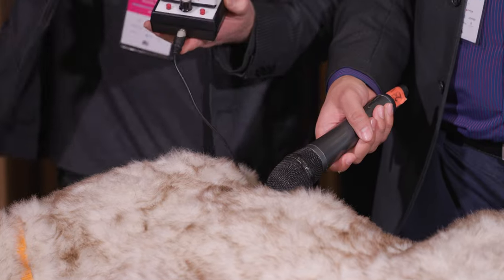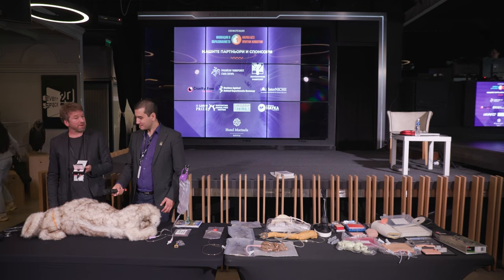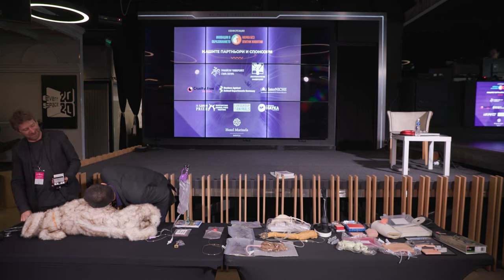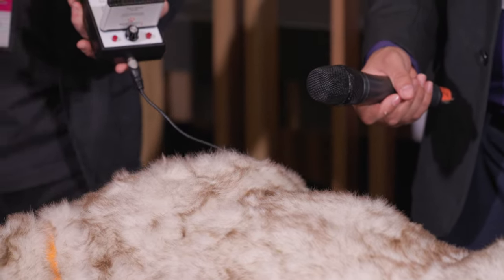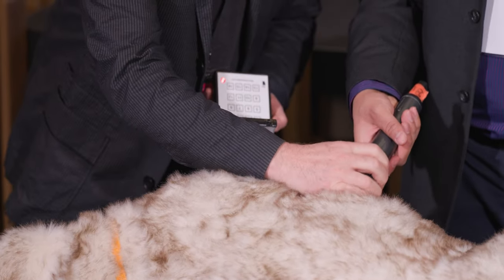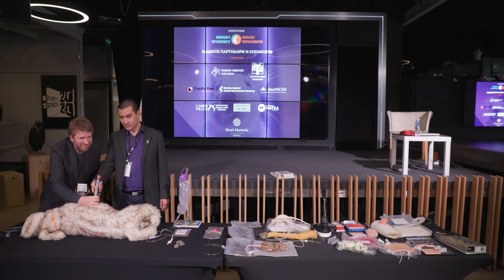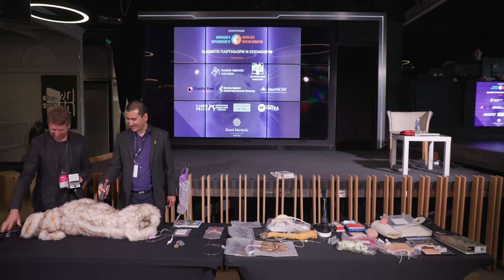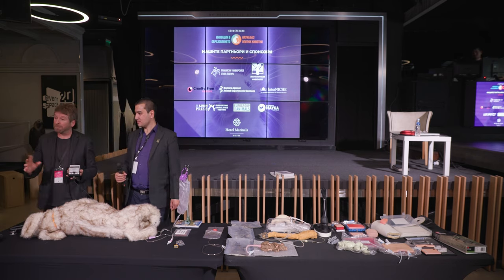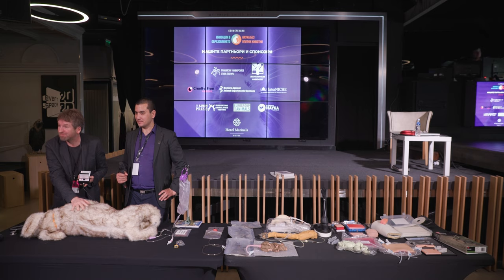You can use your stethoscope to hear that, or you can put your ear to Jerry. Let's let Vladimir have a listen. Every sound is different. We can finish the demos now, and you're very welcome to come up for a few minutes, have a look at all of these models, and have a listen to Jerry's many problems. But we're going to make him better, so it's all good.